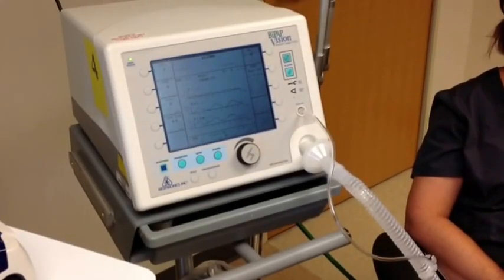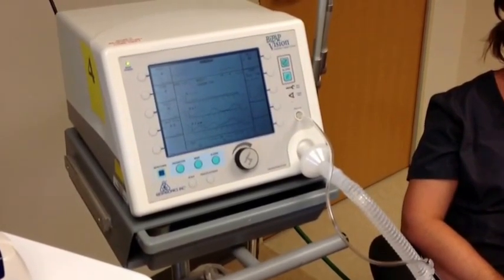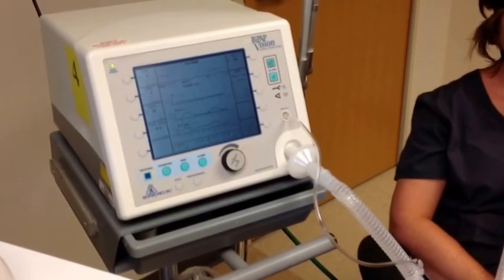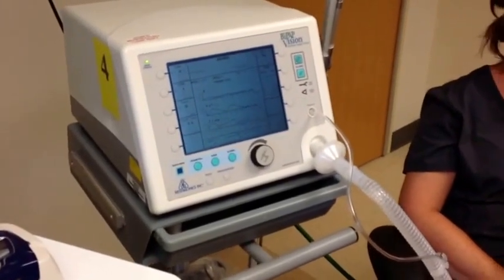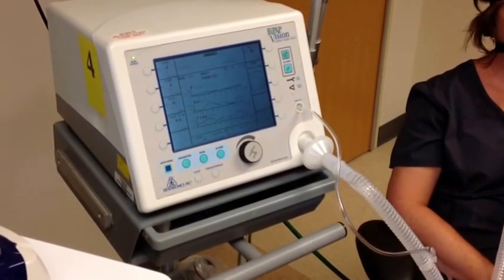This is an introduction to BiPAP video intended for nurses caring for patients on comfort care, presented by the Methodist Hospital Respiratory Care Department. BiPAP consists of a continuous pressure like a CPAP, called EPAP on a vision, but has a larger pressure that kicks in during inhalation to actively assist with breathing, referred to as IPAP on a vision.